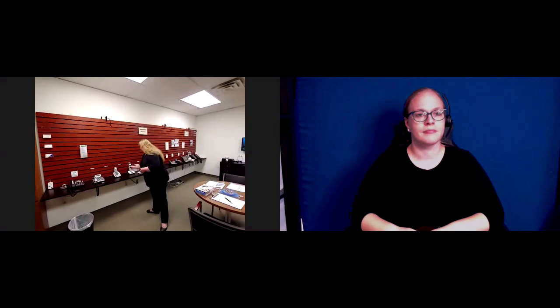There are cordless amplified phones of different types. The important things to look for are those volume controls, as well as tone controls. The volume makes it louder or softer, and tone adjusts the frequency. Do you hear the high sounds better or the low sounds better? So that you can adjust the phone to match what you need for hearing people better. We have a live telephone line here so that you can make calls to friends or family to see how it sounds before you make a decision.